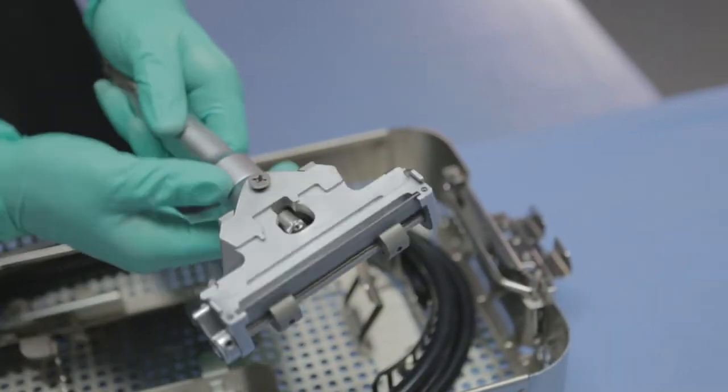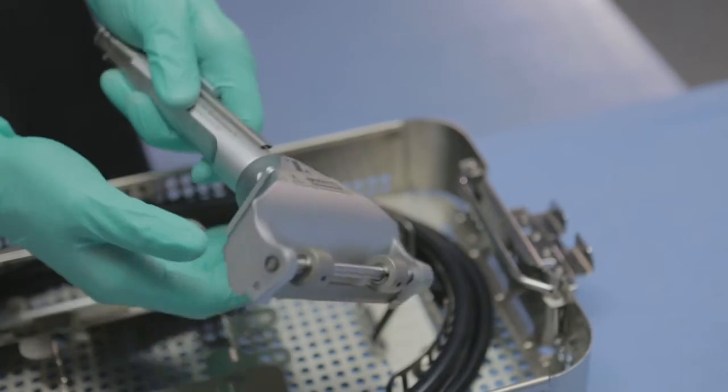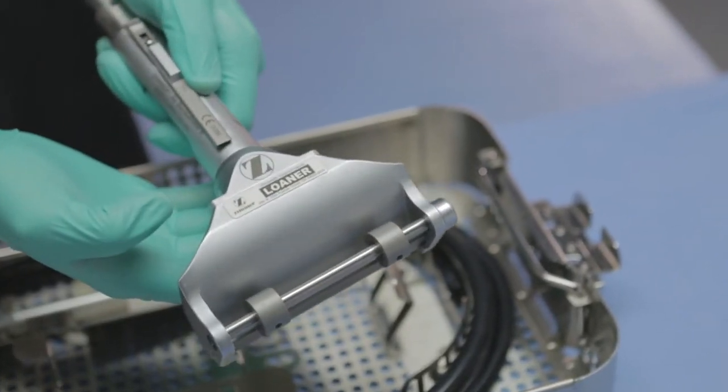Handle the Zimmer Air Dermatome II carefully as it is a precision instrument. Dropping and bumping it against a surface may cause damage.